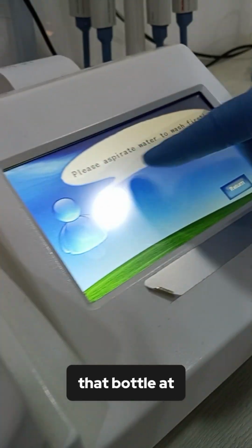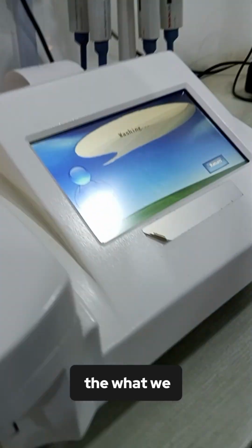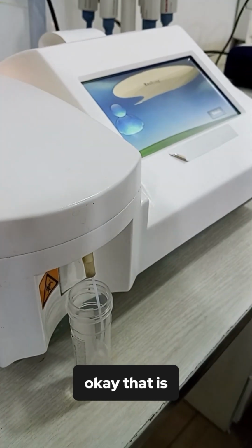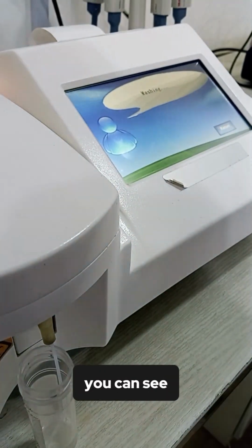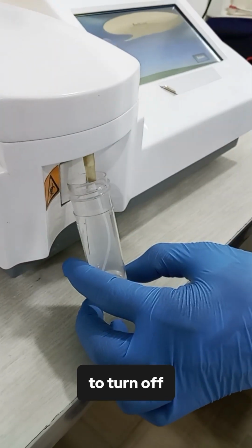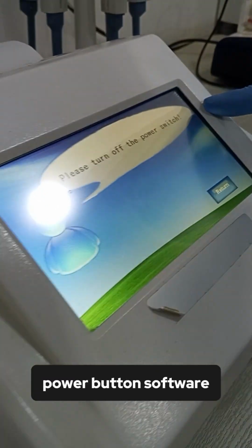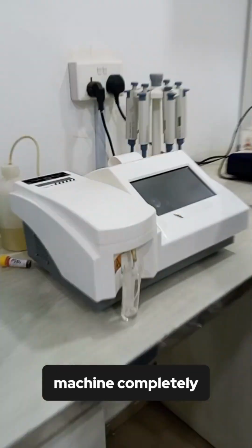Look at that bottle at the back of the machine. That is where what we are washing is going. You can see we are washing the machine. Now we want to turn off the machine. You have to click on the power button software, then you watch the machine before turning off the machine completely.